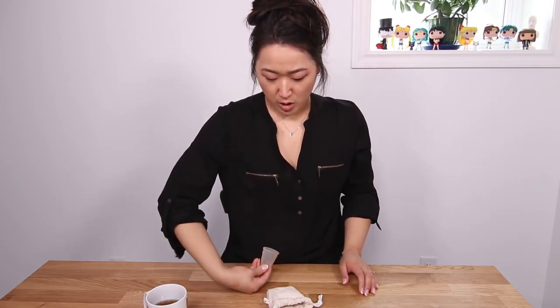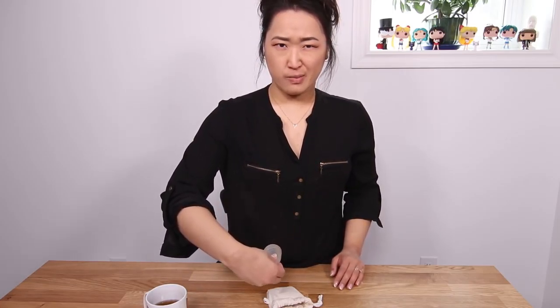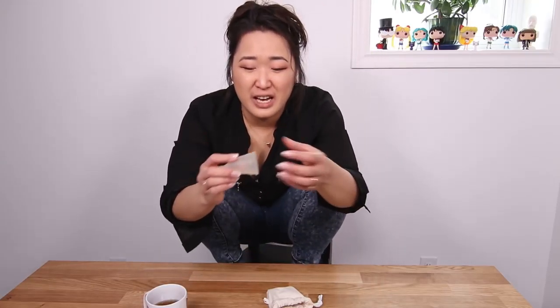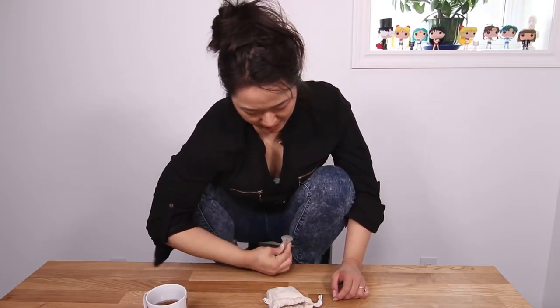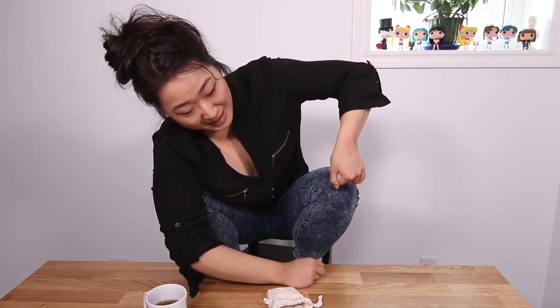When you're inserting, you have to be aware of the way the vagina is shaped — it's not a straight up-and-down line, you kind of have to go back. So when inserting, you kind of have to do a little squat — this is the classic Vietnamese chill-out squat. I'm holding it and I kind of scoop in and then push back. That was a lot more graphic than needed. I probably didn't need to squat for that, but just demonstrating things for you guys.